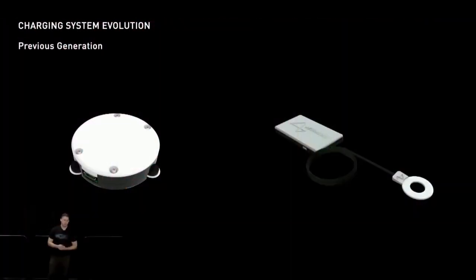In pursuit of these goals, our charging system has gone through several engineering iterations. If you watched our pig demo in August of 2020, Gertrude was implanted with a version of the N1 charged with our first generation charger. This device was implemented in a small puck package and later separated into a remote coil and battery base. This charger was challenging to use, however, we learned a lot through its implementation.